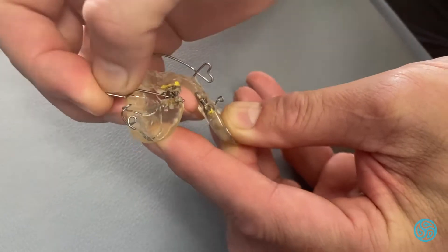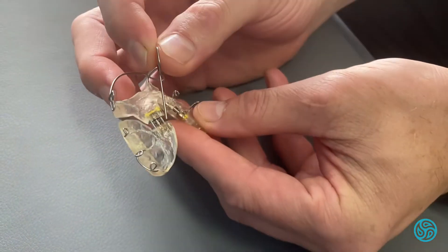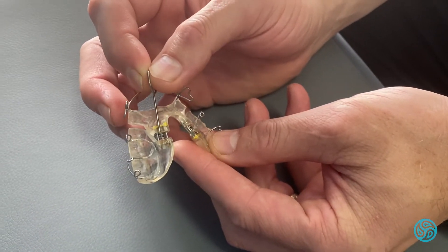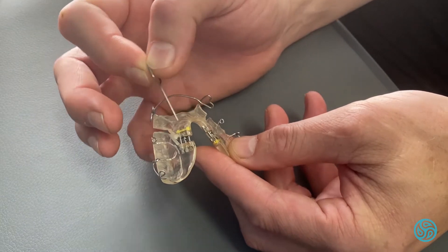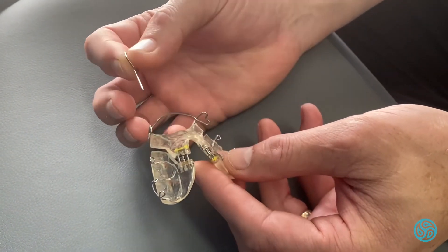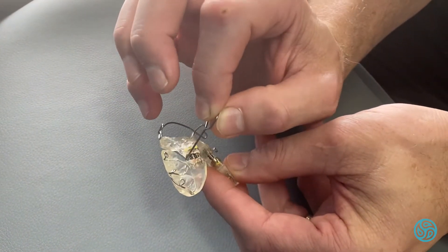We've had some issues where we get uneven turning, or the turn goes halfway back and then people turn halfway forward, but then we've actually lost the full turn. I just want to make sure that we keep going forward in that direction, opening up this little space on a continuous basis.